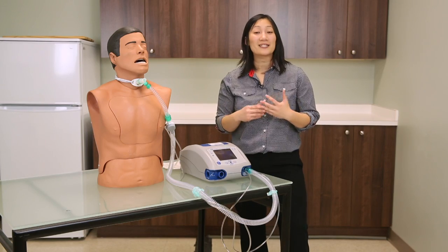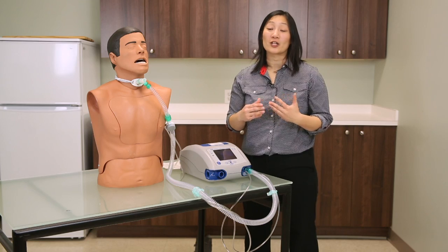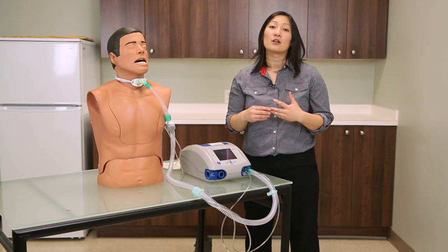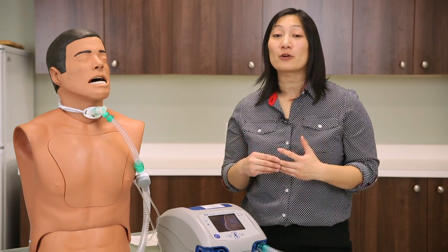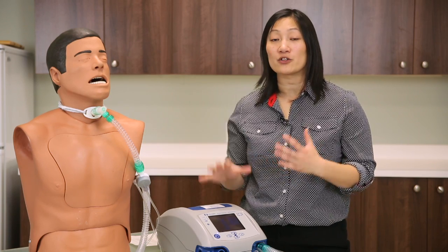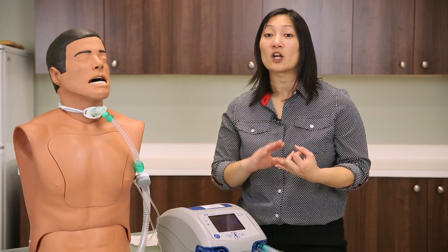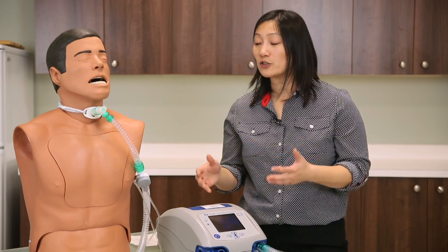In summary, an appropriately set low pressure alarm is essential for your client's safety — an inappropriately set low pressure alarm can lead to death. The only way to ensure the low pressure alarm is appropriately set is to simulate a disconnection from the client to the ventilator and ensure there is a visible and audible alarm. If you are unsure or unclear as to how to set your low pressure alarm, please contact your PROPRT and they can walk through this process with you over the phone.